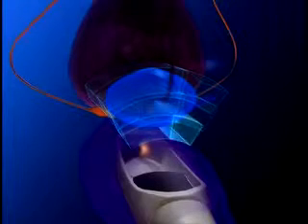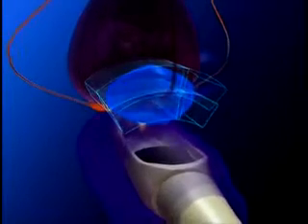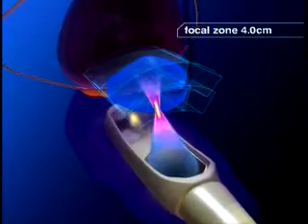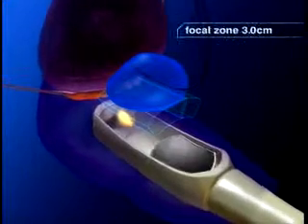Similar to what happens when sunlight is focused through a magnifying lens, precise focusing of ultrasound energy during HIFU treatment elevates the temperature of the tissue in the focal zone very rapidly, while intervening tissue between the transducer and the focal zone is kept at a safe temperature.